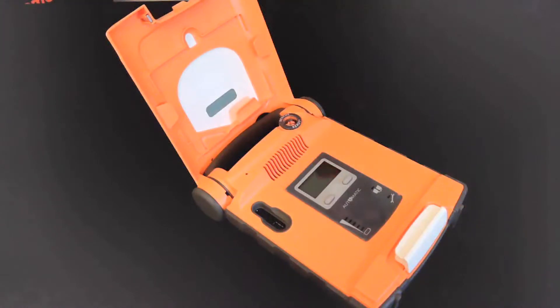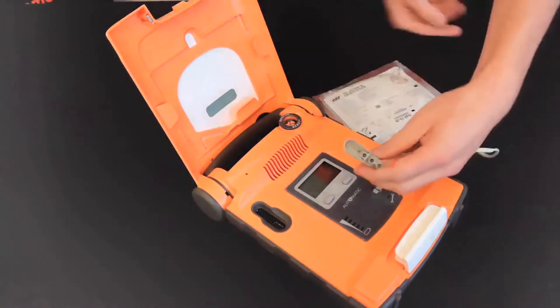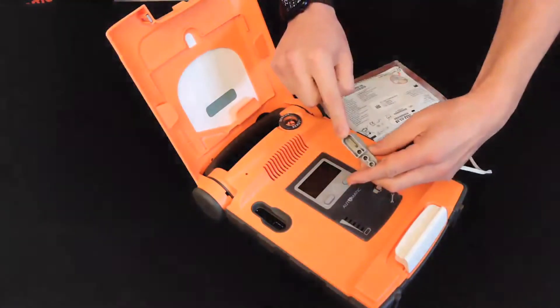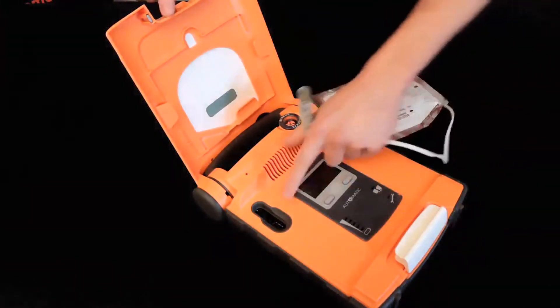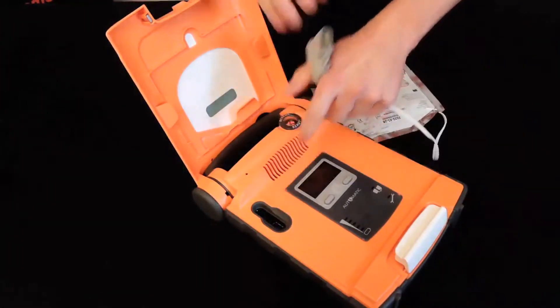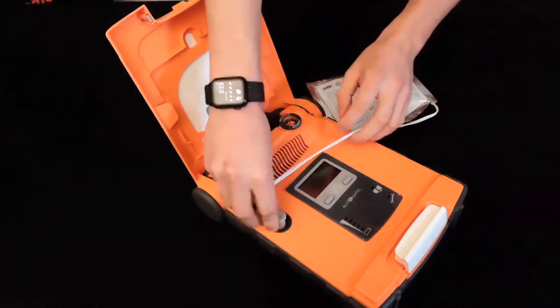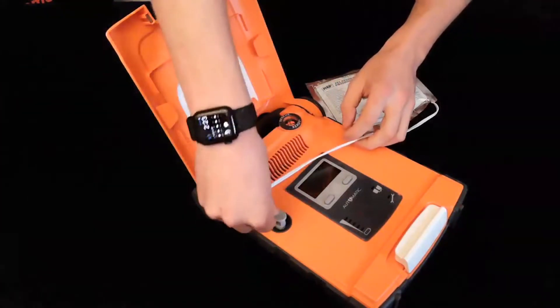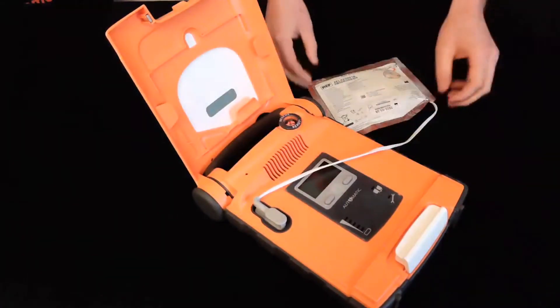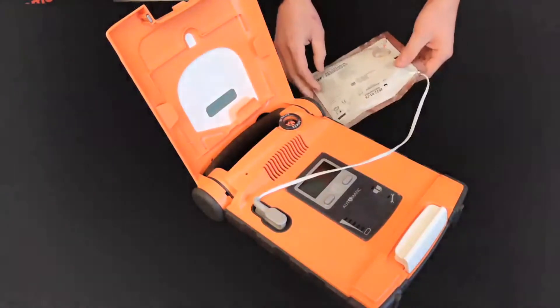Take your new pads and simply plug them in, ensuring the USB connector fits to the wider portion of the rubber insert on the face of the AED. Make sure the pads connector is pushed all the way down to ensure the pads do not come unplugged.